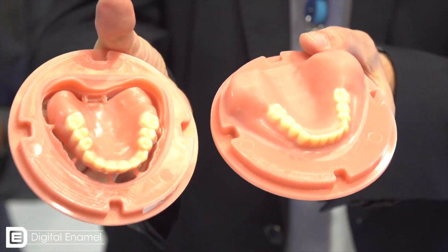One of the problems we have in 3D printed dentures and milled dentures is fusing the teeth to the base. This comes pre-fused. And if you're not familiar with how digital dentures are made, the teeth are pre-set up so they have group function. Can you tell us a little bit about the process of getting this?